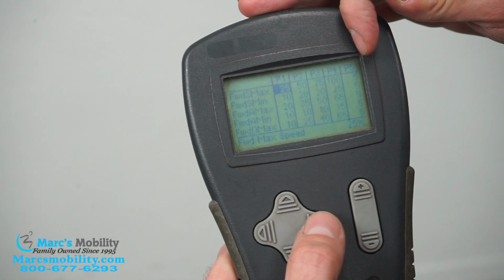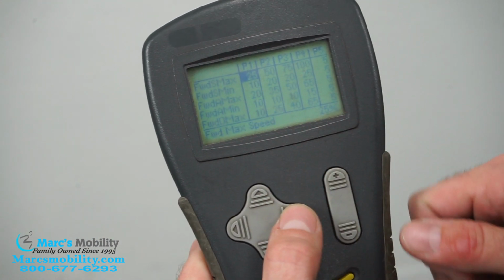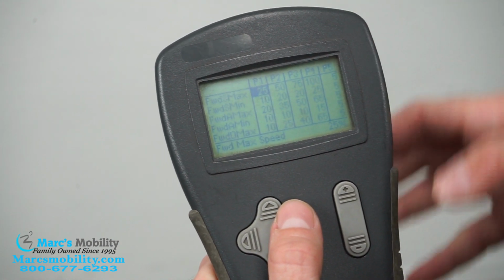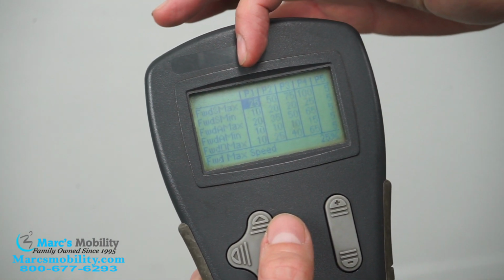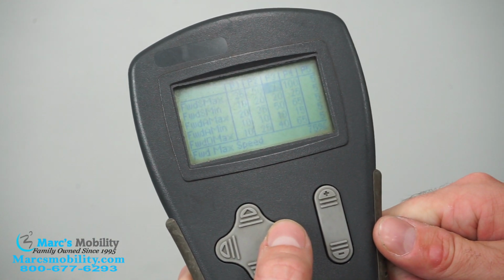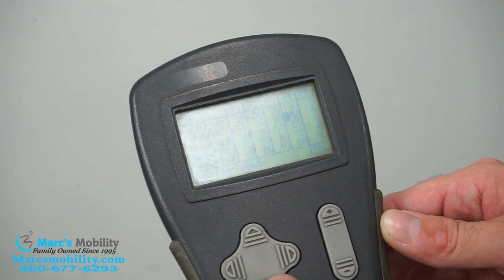P5 is going to be your seat functions mode, so you don't really need to mess with that. But you'll see up here forward speed max, forward speed minimum. Basically, you're just able to set a percentage from 1 to 100 of how fast you want everything to go at any particular profile. Being 1 is usually your slowest and 4 is usually your highest. So you can see here, forward speed max for P1 is 25, while if you go all the way to P4, it's at 100, which is as high as you can go. So you can set that to whatever range you'd like.